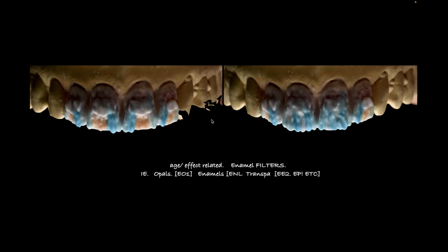My advice to us is give people a spatula, give them a brush, and let's get them building more of the teeth. This way, when they utilize digital, they have a better understanding of how and when to use it. And the value of them will be much better down the road because they'll have the ability to do a little bit of everything, not just mill, staining, glaze. We need more.